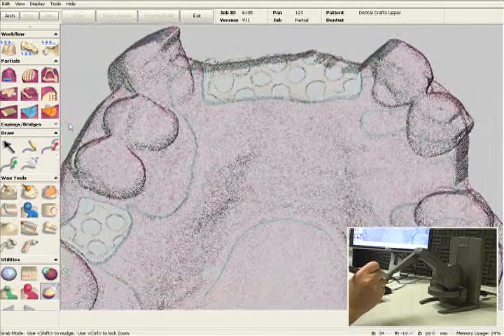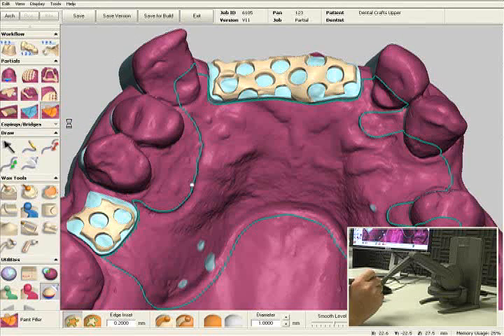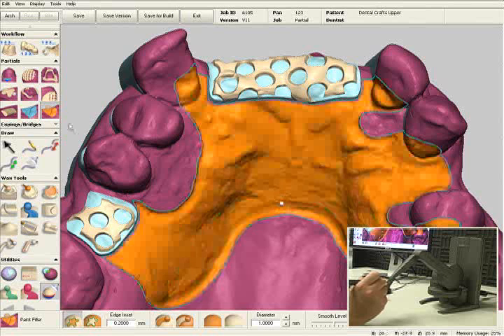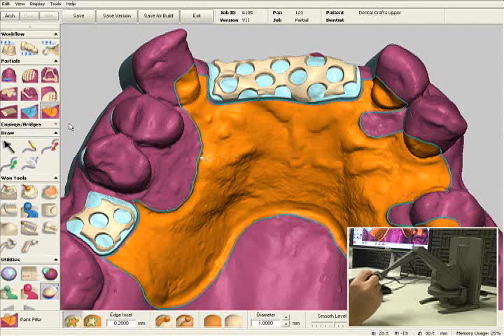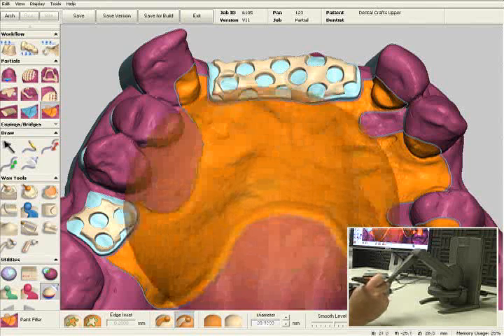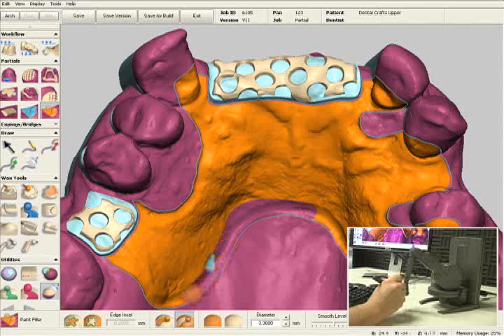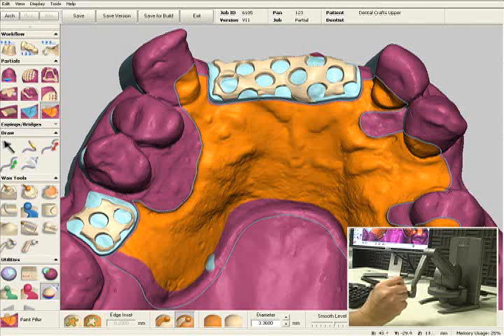I'm going to zoom out a little bit and click on the outline. You'll see an orange patch within the outline that I just drew for the major connector. The additional block out wax will be added everywhere you see this orange color on the screen. If you see any spots where you don't want to add additional block out wax, it's very easy to remove. Let me resize my tool here, and I can touch the model and just delete the orange color from all the areas that I don't want to add block out wax to.